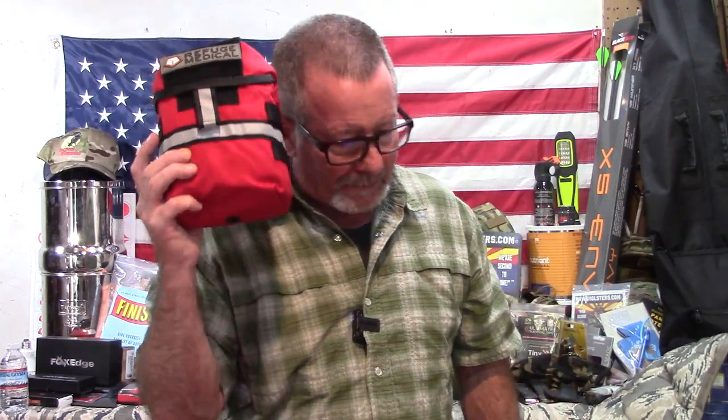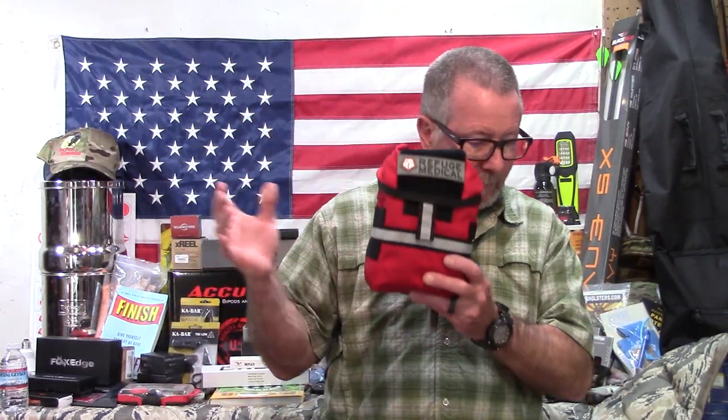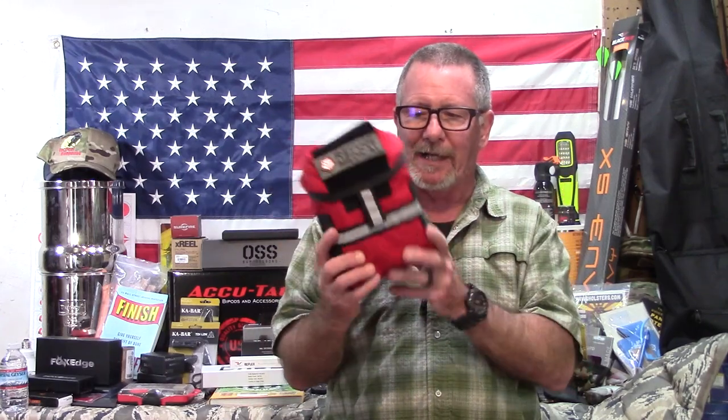27 lives saved — that is absolutely pretty cool, in my opinion. They've been used on four continents by five branches of the United States military, developed in conjunction with the U.S. Armed Forces. They're made by a small business bootstrapped from the dining room table to international recognition. They use the best medical components available and don't skimp on anything. So these are definitely not low-budget kits — I'll say that right up front. Some people are going to freak out about the price, but the price on this kit right now is $249.